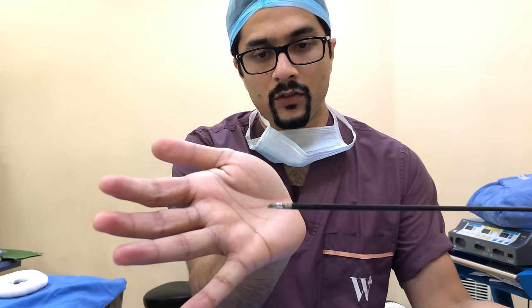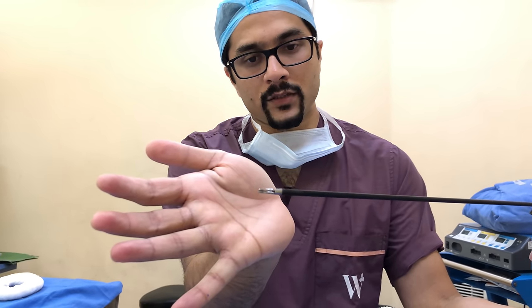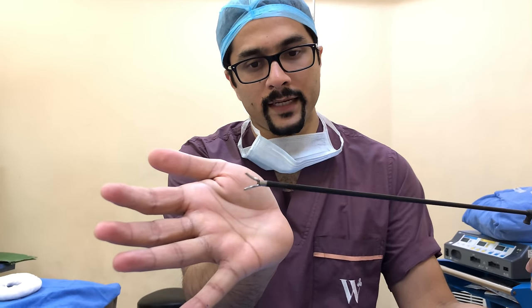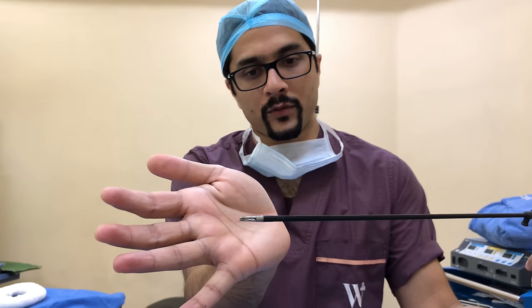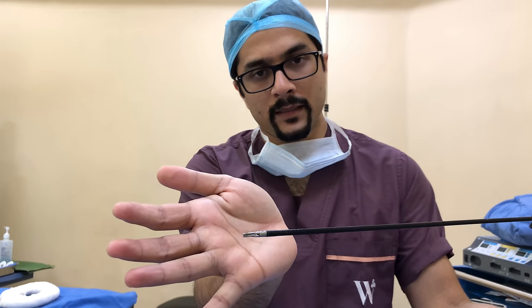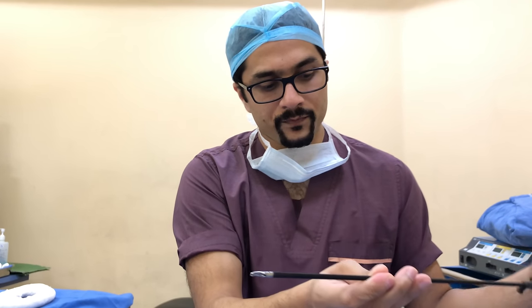Now for the laparoscopic instruments: this one looks like a regular forceps and is called a Maryland's tissue dissector. The Maryland's dissector is the workhorse of a laparoscopic surgeon — it is the most commonly used instrument.